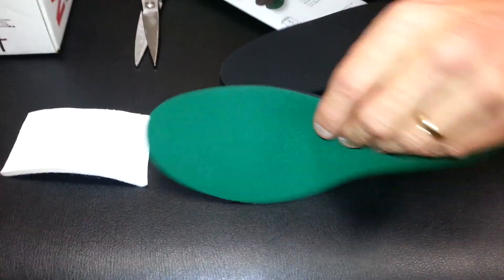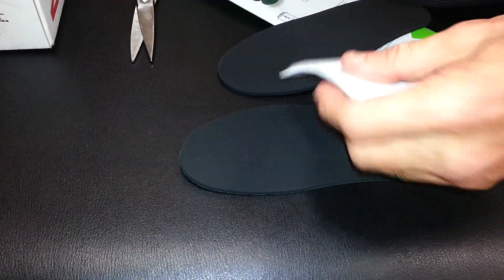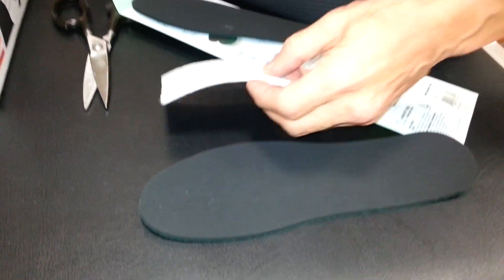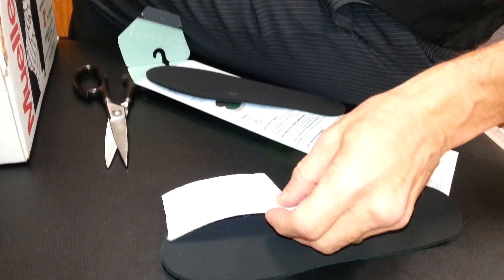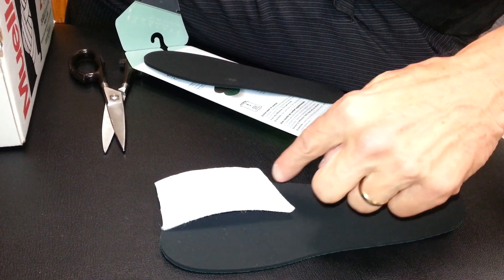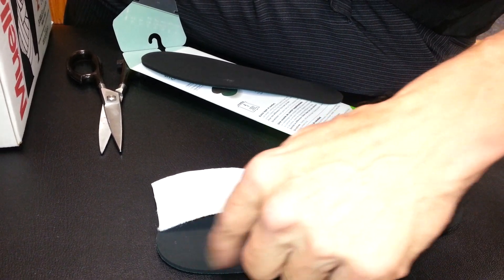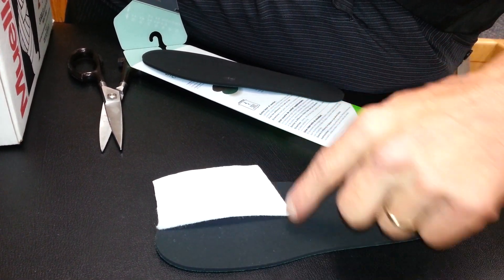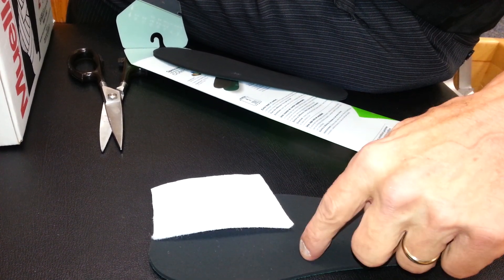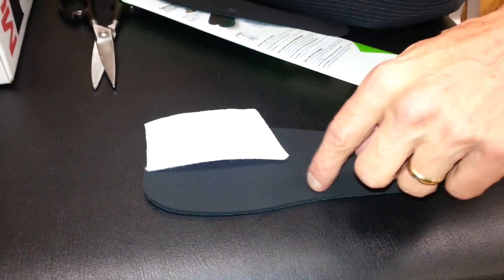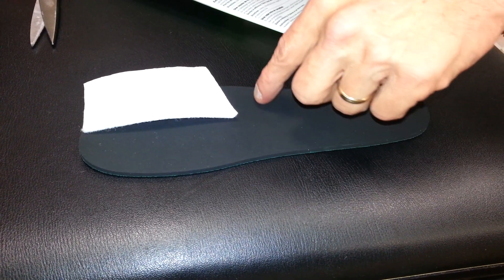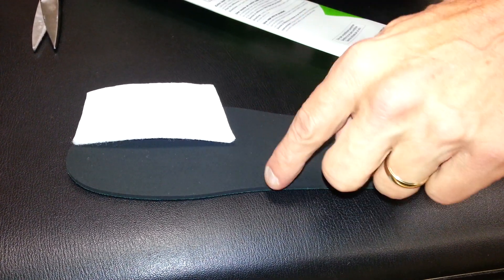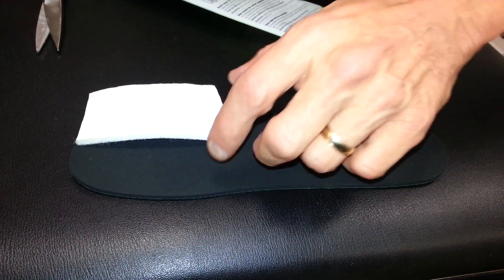Then you'll flip the insole over and you'll put a pad along the line of where you just cut out. You'll leave that cut out, put this along the line and underneath, back behind where the pain is. You'll need to come back about just starting into the arch. That's as long as it needs to be.